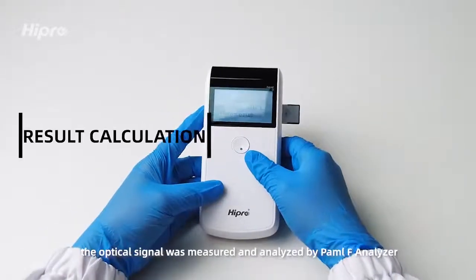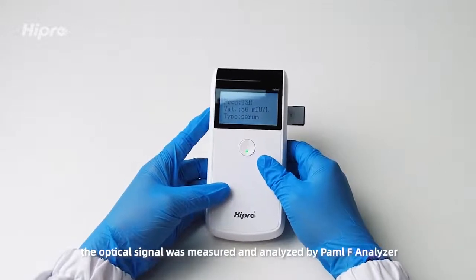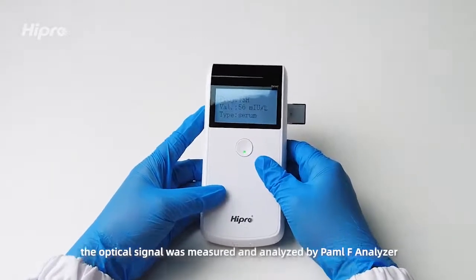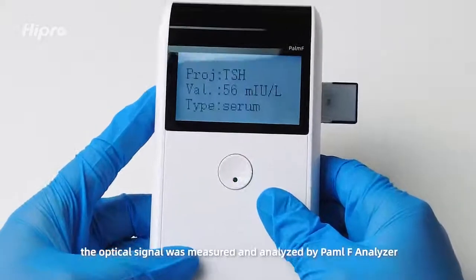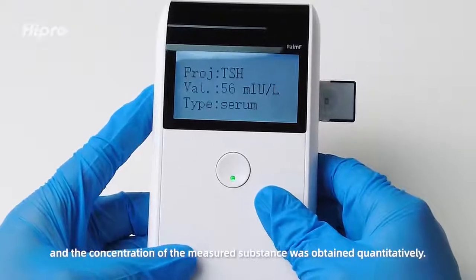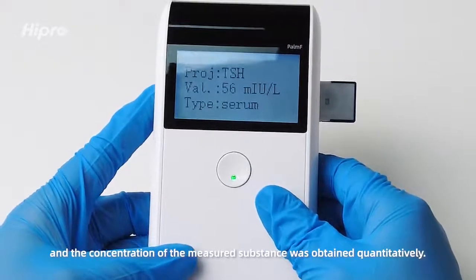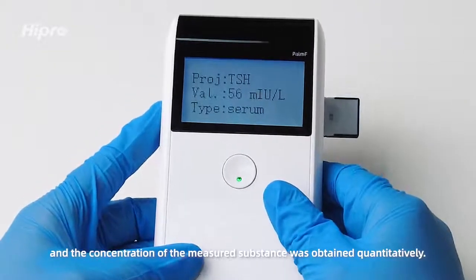Result calculation: the optical signal is measured and analyzed by the Palm F Analyzer, and the concentration of the measured substance is obtained quantitatively.